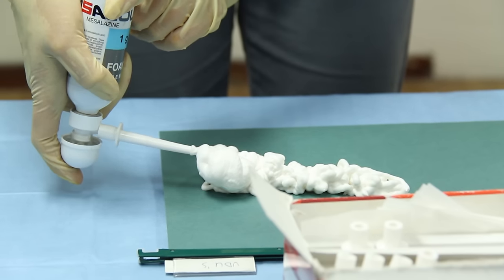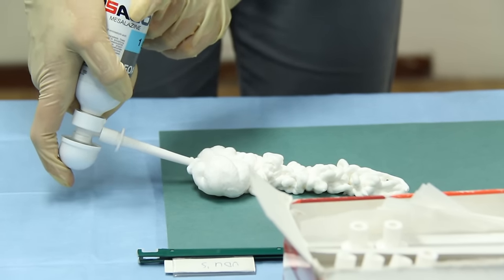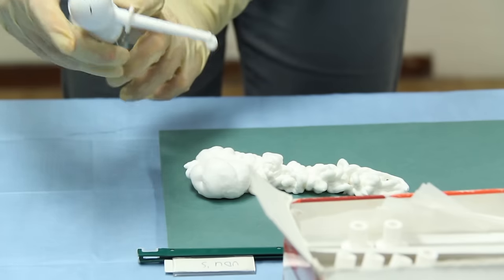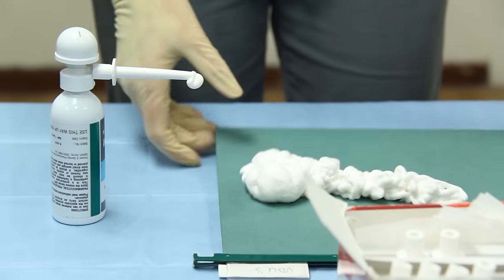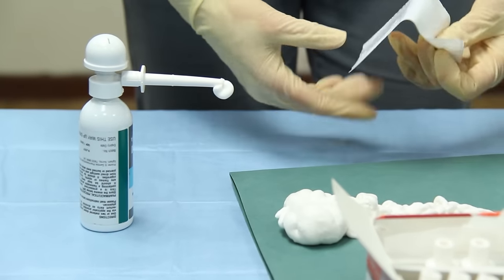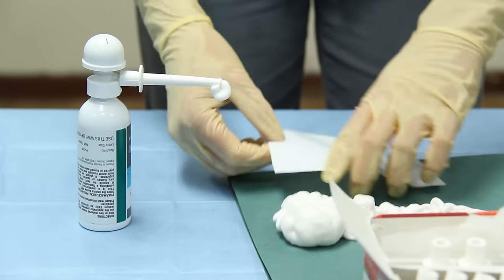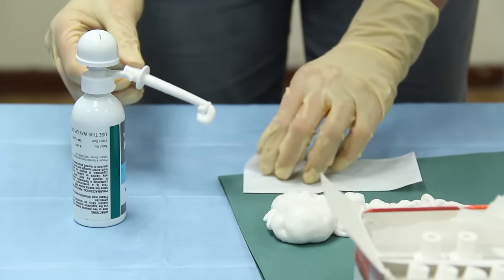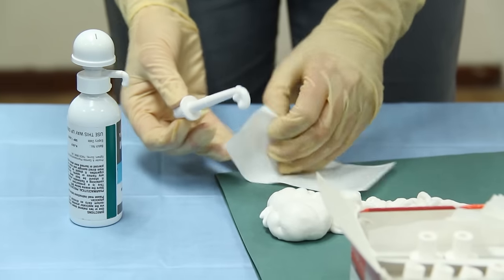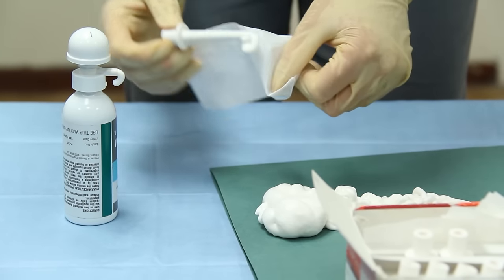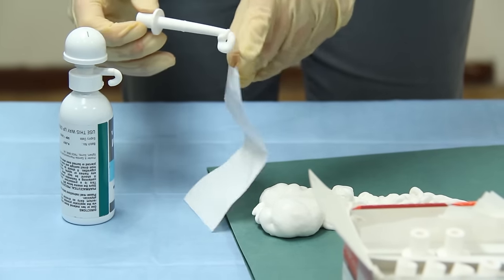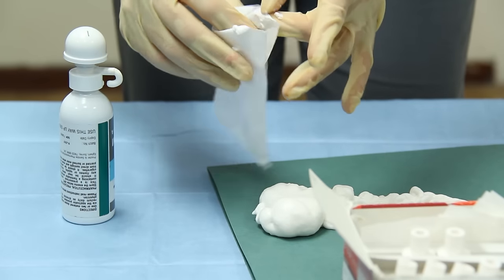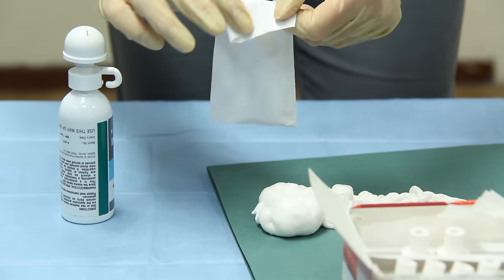They need to take it out the back passage, get the disposable bag, take the applicator off, place it in the bag, and that's ready for disposal.